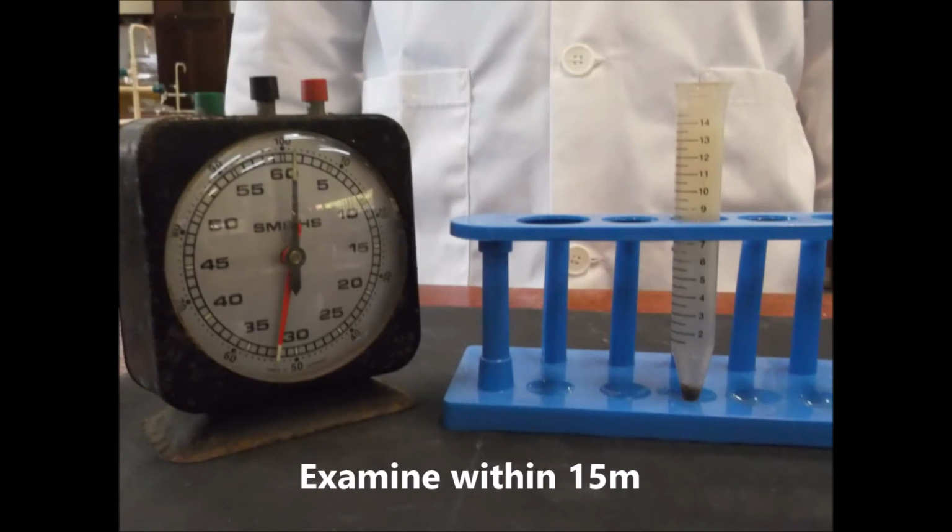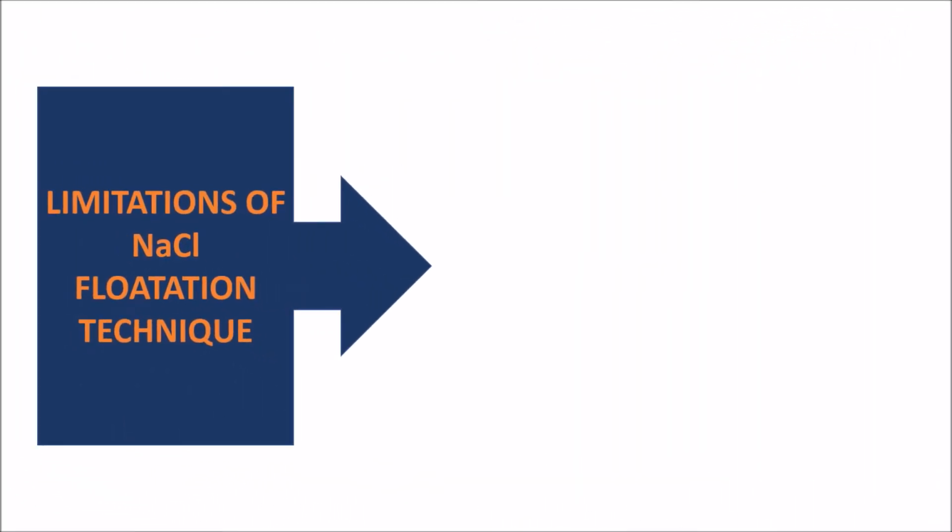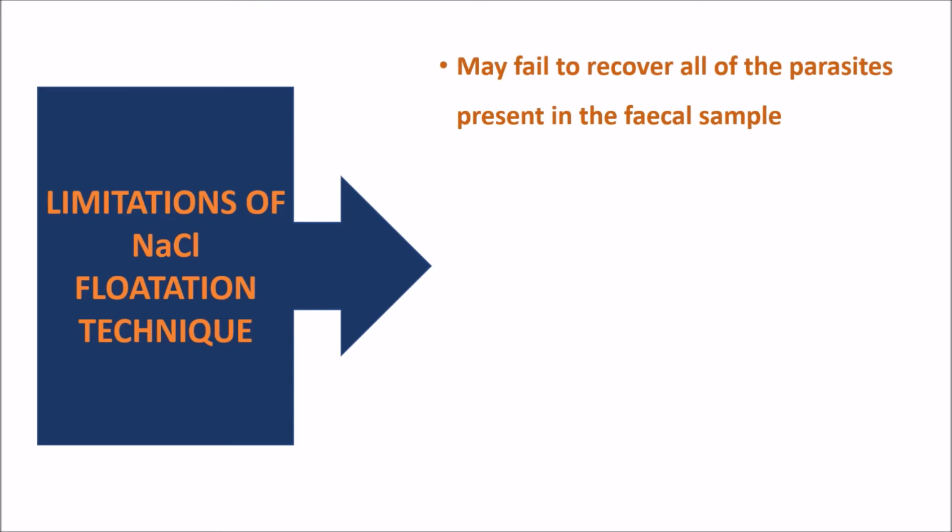You must examine this concentrate within 15 minutes. If left for too long, the high osmotic pressure of the solution will distort eggs and cysts, making it impossible to identify. Some limitations of the sodium chloride flotation procedure are shown on the screen.